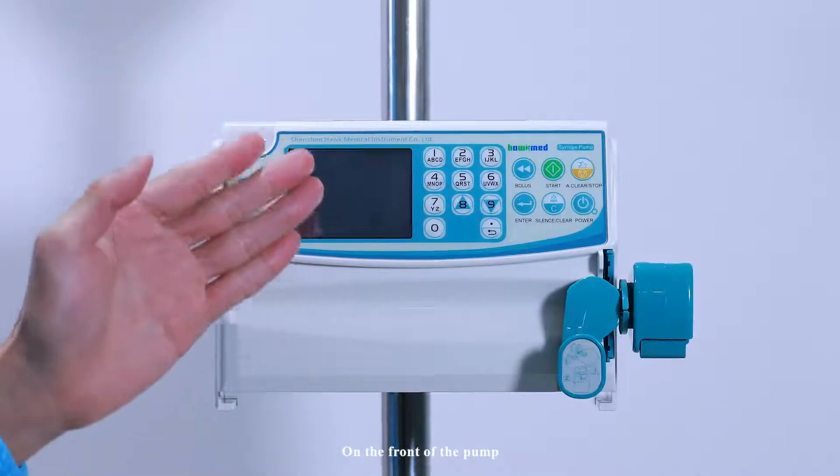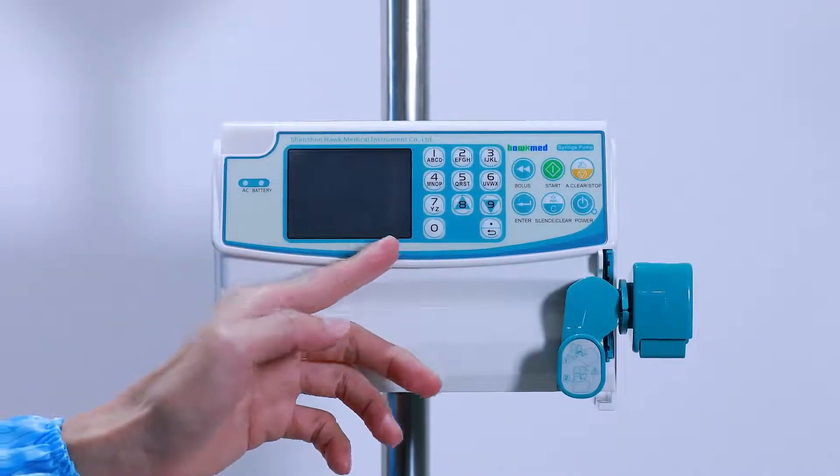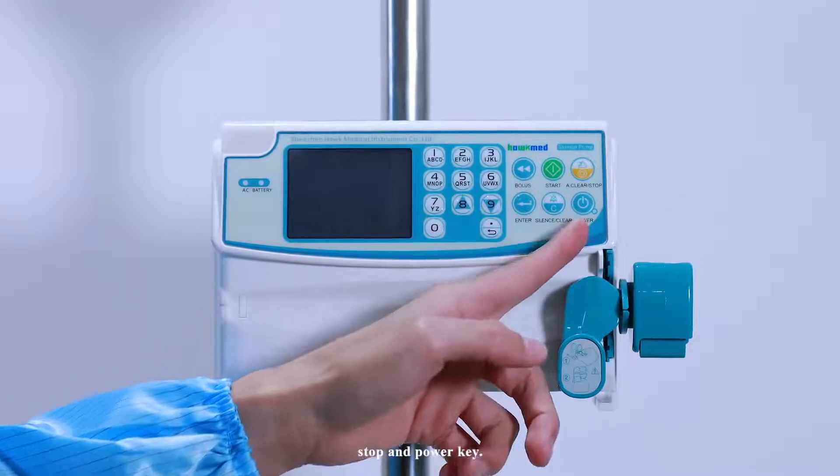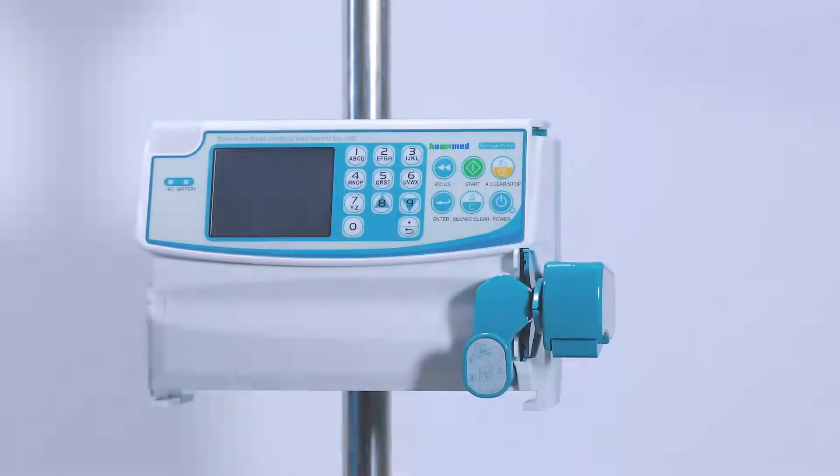On the front of the pump, there are alphanumeric keys, bolus, start, stop, and a power key to operate the pump.